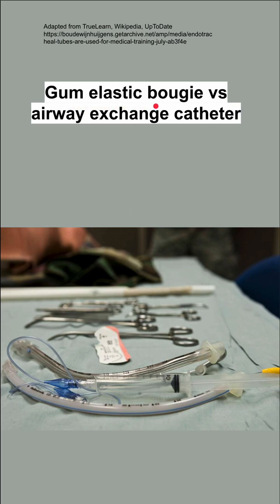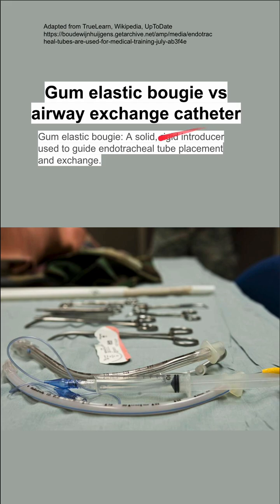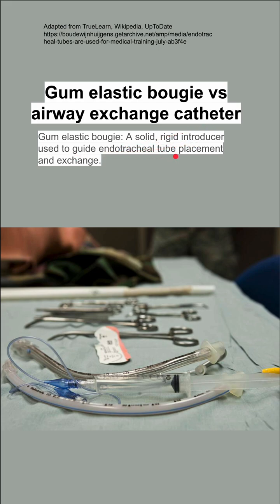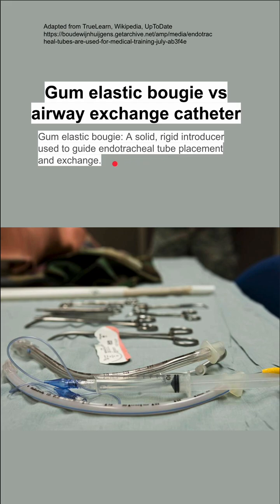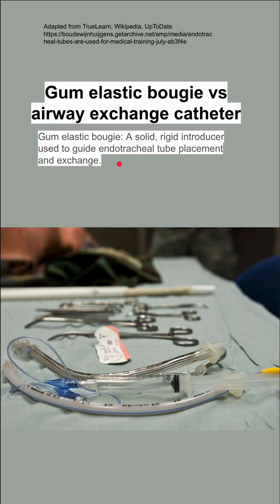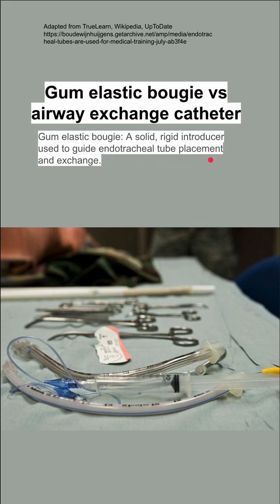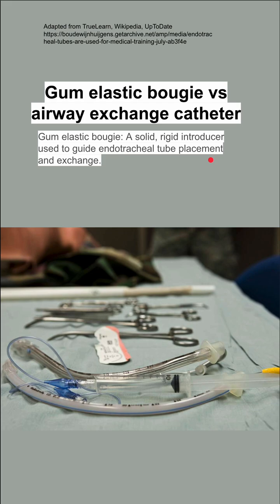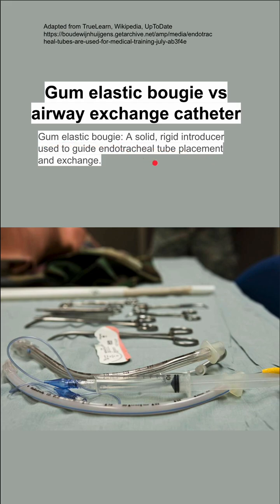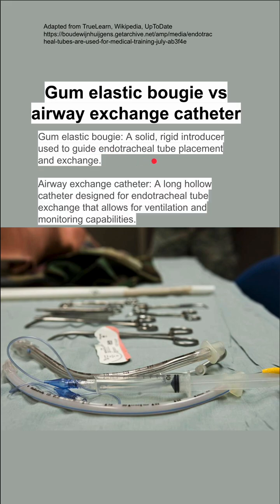This is a comparison of the gum elastic bougie and the airway exchange catheter. The gum elastic bougie is a solid rigid introducer used to guide endotracheal tube placement and exchange. It's not hollow — you put it in and then guide the endotracheal tube over it. If you already have an endotracheal tube in, you could put the gum elastic bougie into it and swap out your endotracheal tube while the bougie stays in the airway.